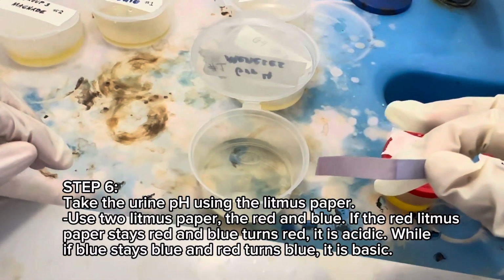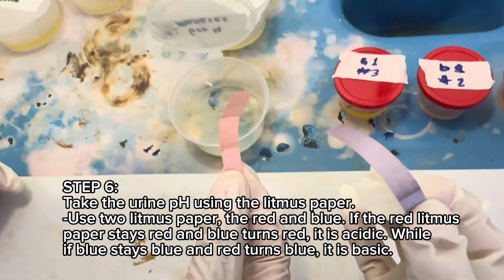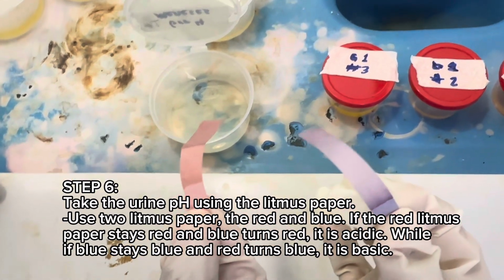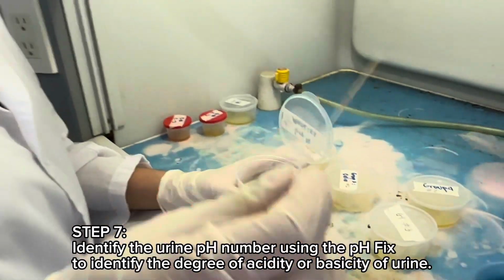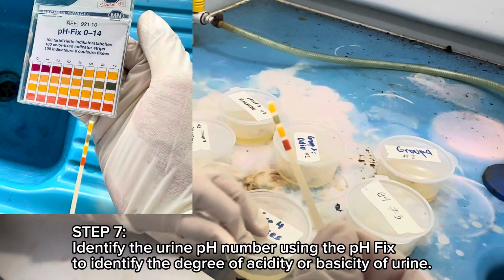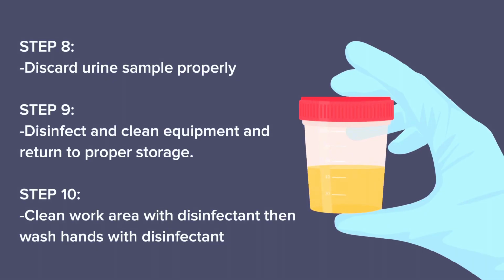If the red litmus paper stays red and blue turns red, it is acidic, while if blue stays blue and red turns blue, it is basic. Step 7. Identify the urine pH number using the pH fix to identify the degree of acidity or basicity of urine. Step 8. Discard urine sample properly.